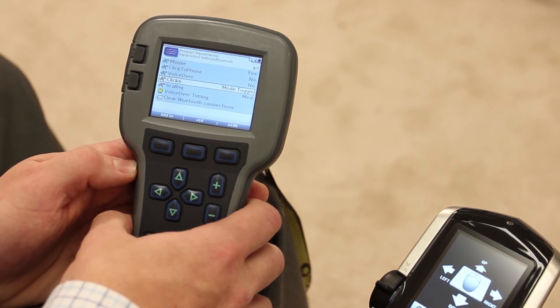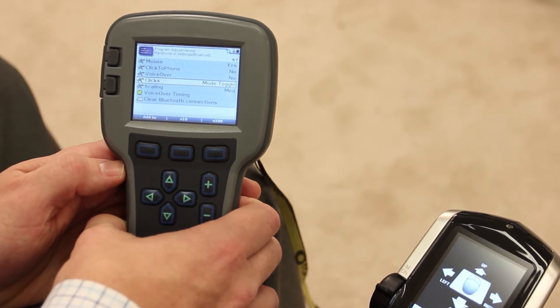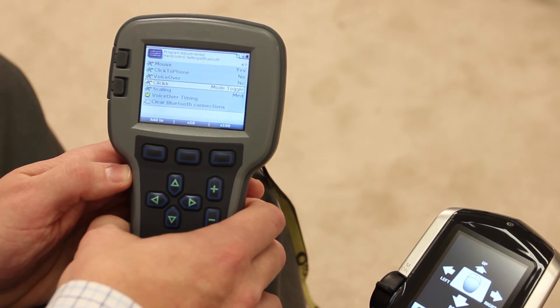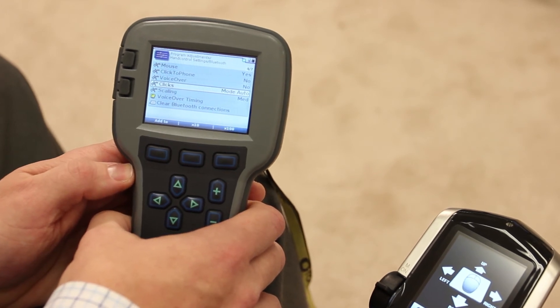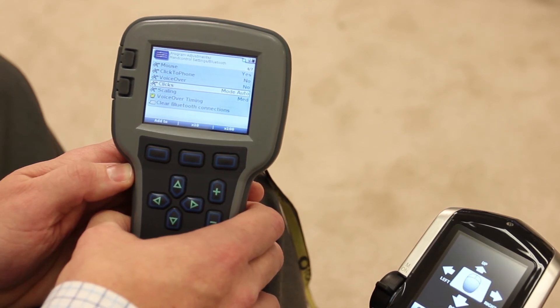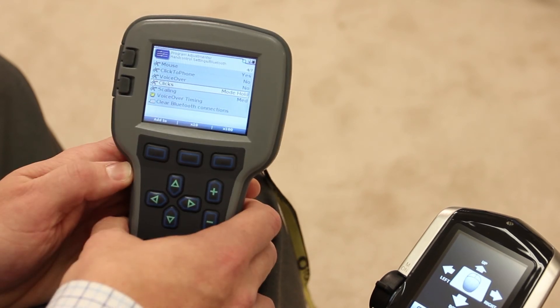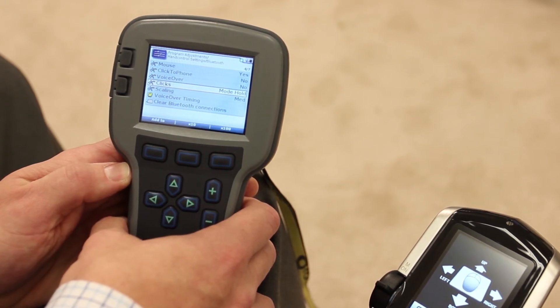The next choice is mode toggle. This uses a switch plugged into the mode jack, and this switch toggles between mouse movement and mouse clicks — that will be seen on the hand control screen. Mode auto is the same as mode toggle, but automatically returns back to mouse movement after a mouse click is achieved — the person hits the switch, goes to mouse clicks, makes the mouse click choice, and the screen automatically changes back to mouse movements. Mode hold is the same as mode toggle, but mouse clicks are only active as long as the mode switch is held down.